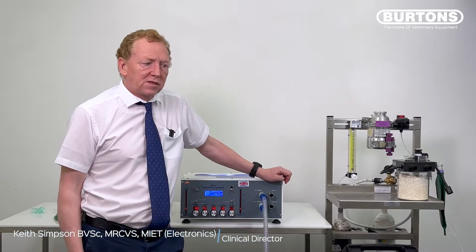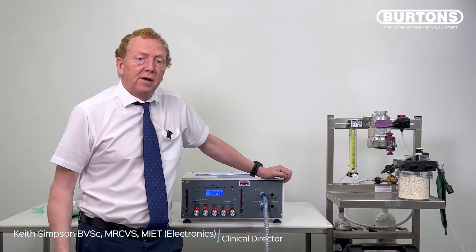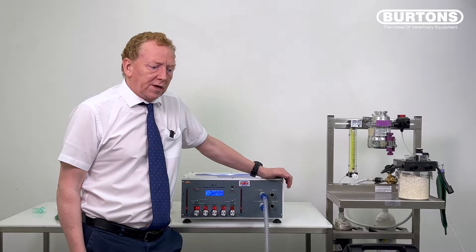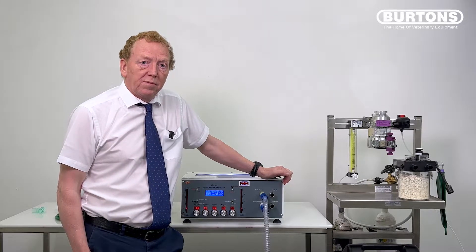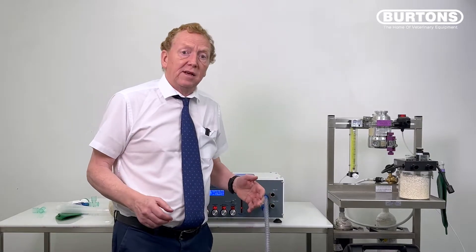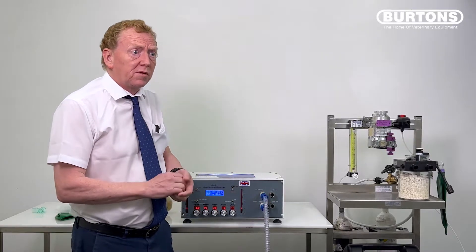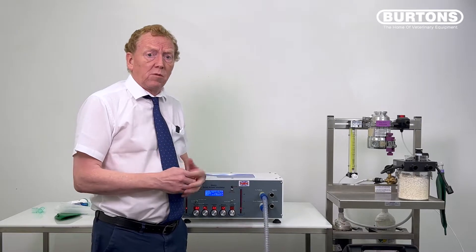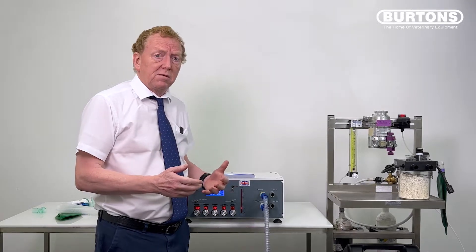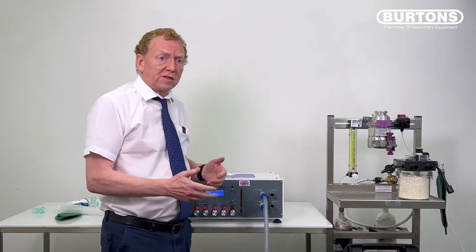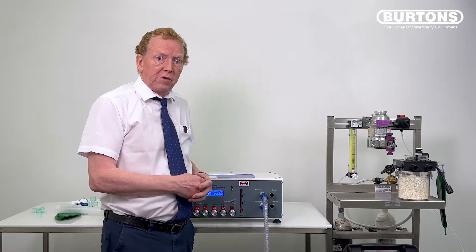Hello, my name is Keith Simpson. I just want to talk to you in this short video about some of the features of Merlin, particularly the nature and behaviour of the gas inlet port. The reason the gas inlet port appears to cause some confusion is understanding what the gas inlet port does. So what I'm just going to do now is look at the gas inlet port and explain how it behaves during normal operation of the machine.